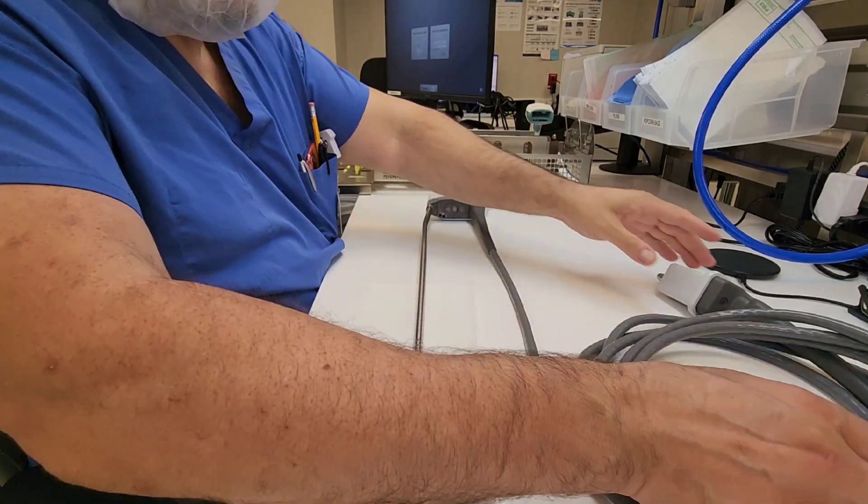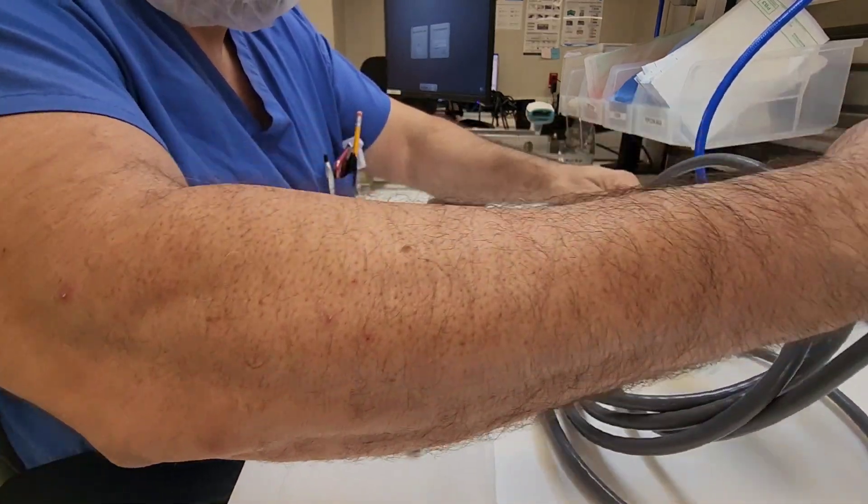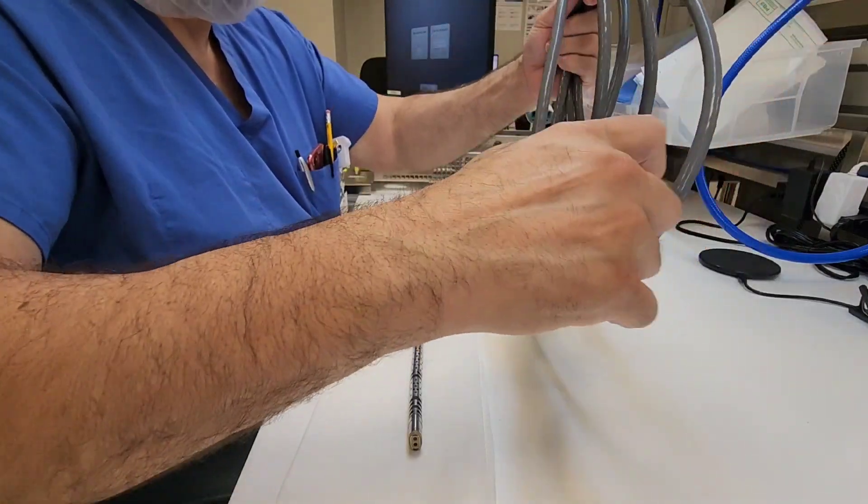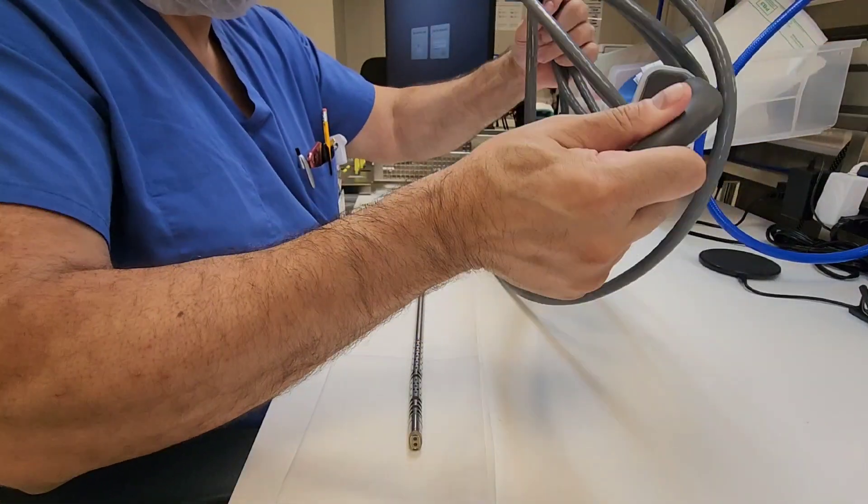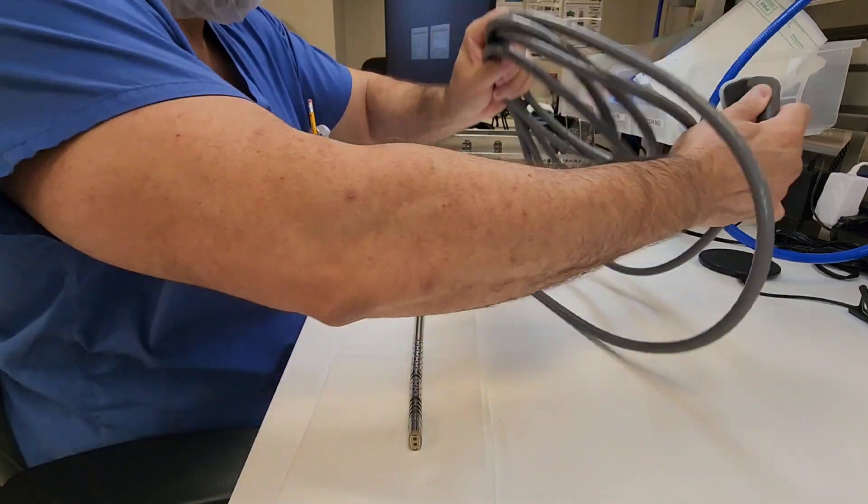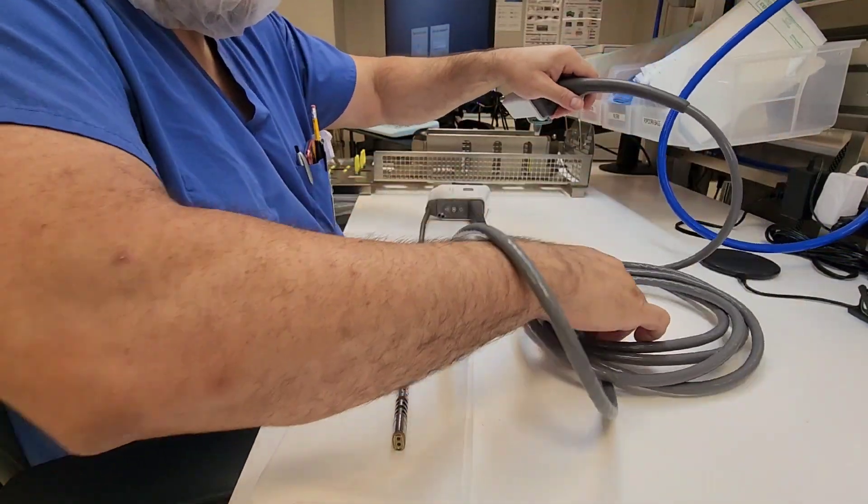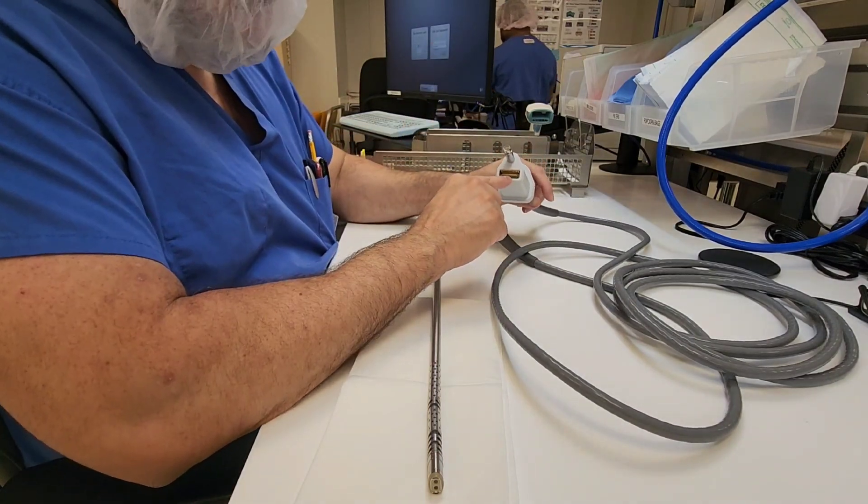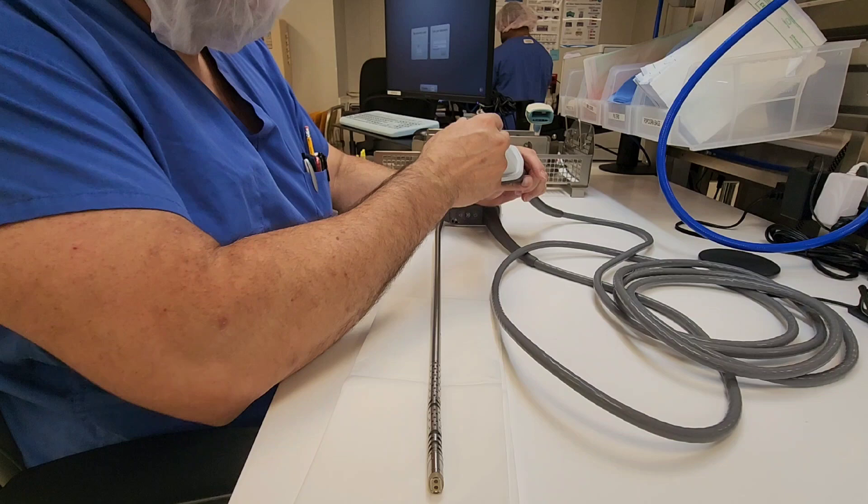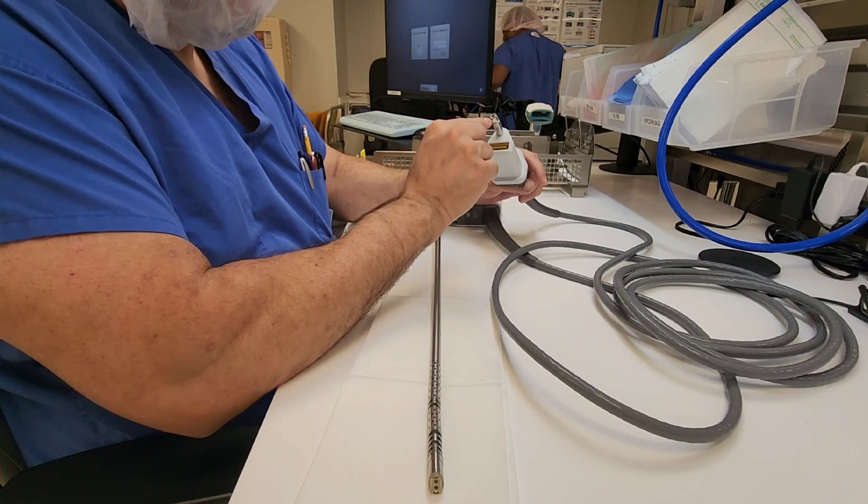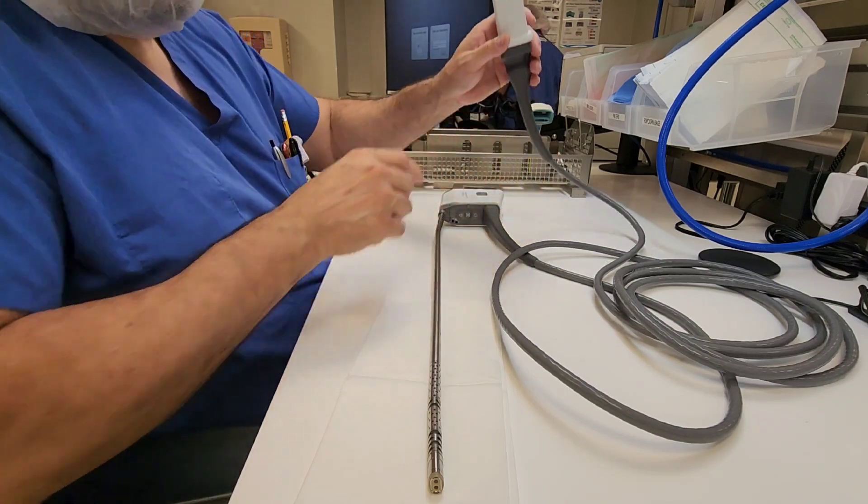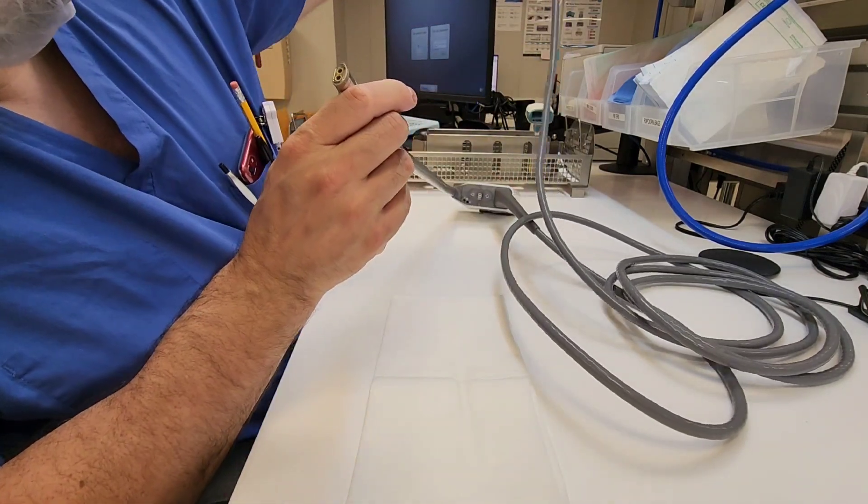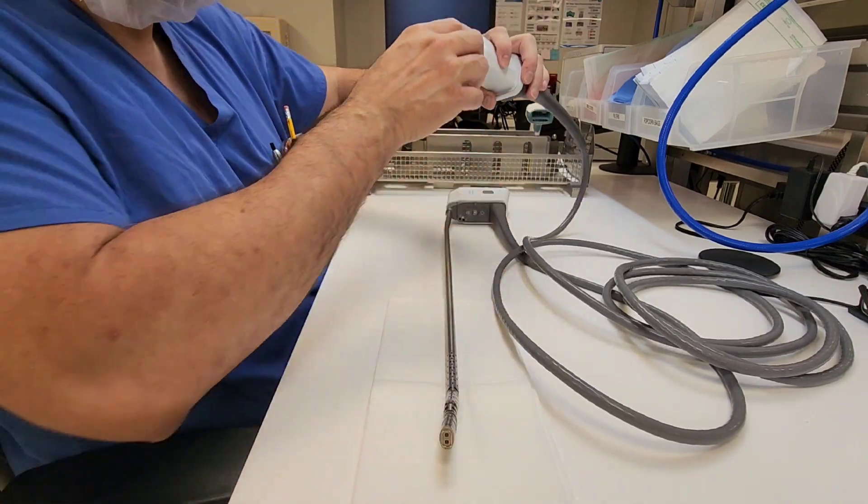We want to inspect our light cord which is connected to the device. The way you do that is you untangle it, inspect those connectors, and make sure that there's no soil adhering to it or any other foreign matter that may find its way to that connector.